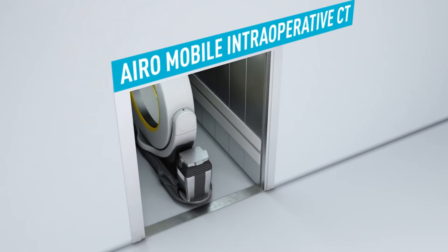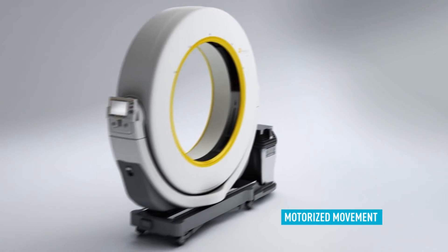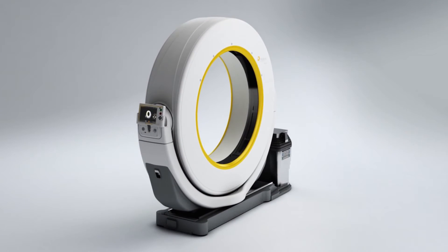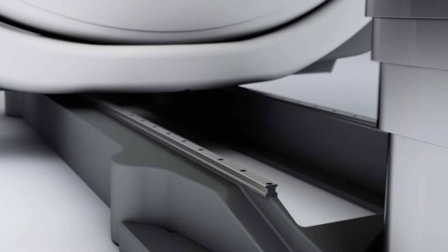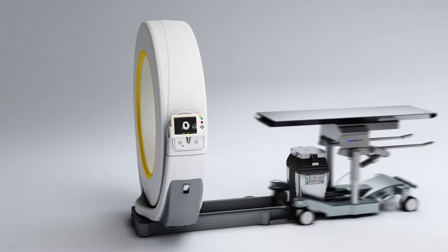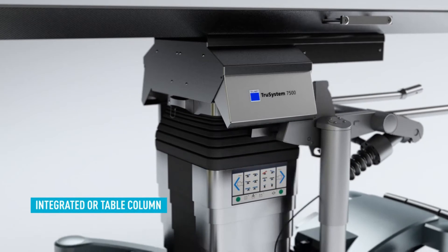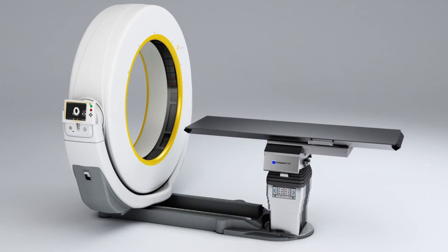The third type is the mobile CT machine. CT machines are capable of going mobile, which is useful in many situations. For example, if your current CT suite is under repair or renovation, you may want to rent a mobile CT machine. If you have lower patient volume at several locations, you could transport a mobile CT scanner for specific intervals of time to each location when needed, rather than investing in several stationary CT machines.